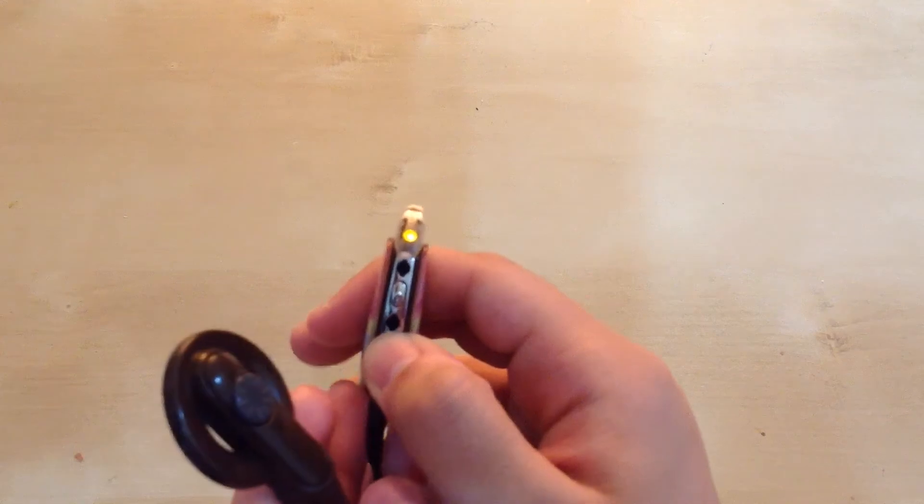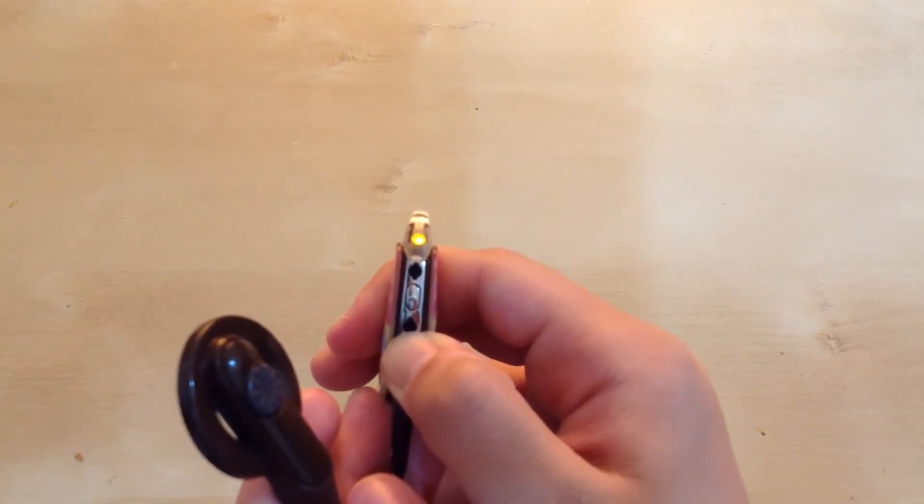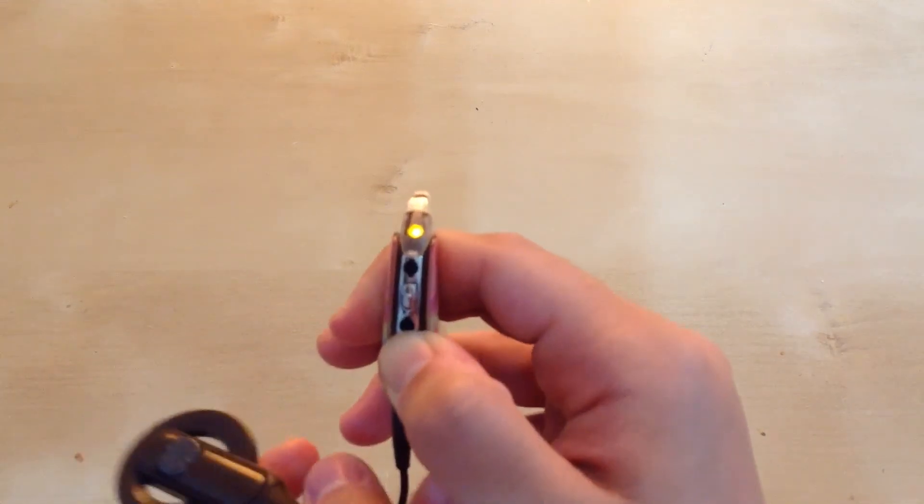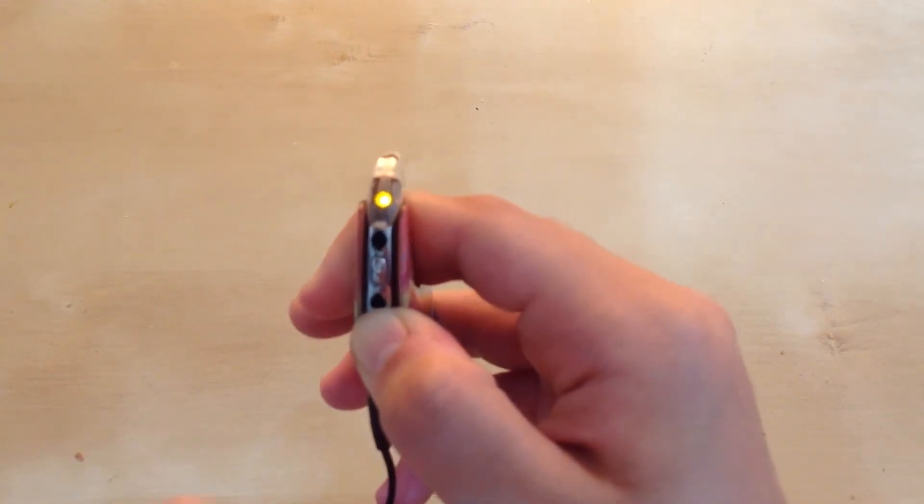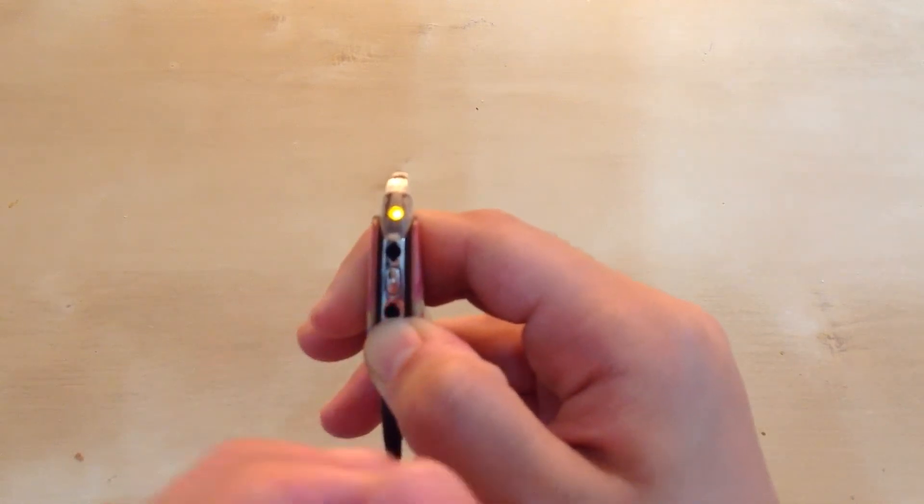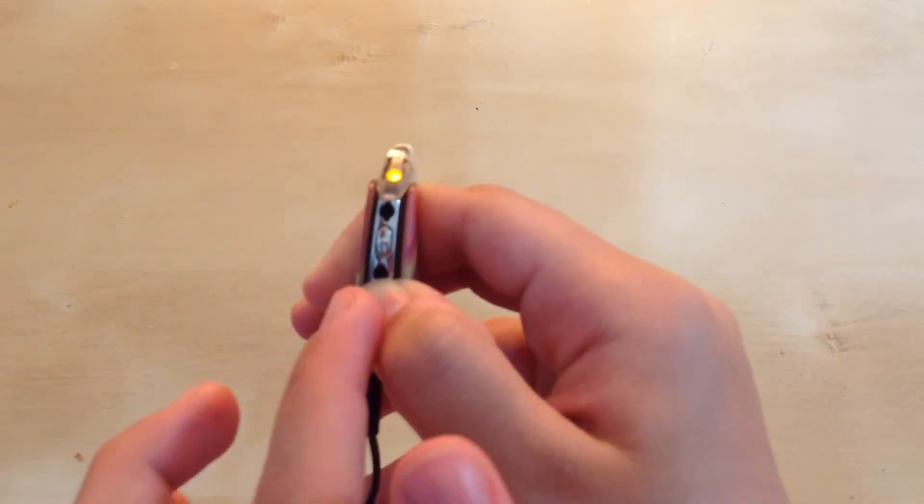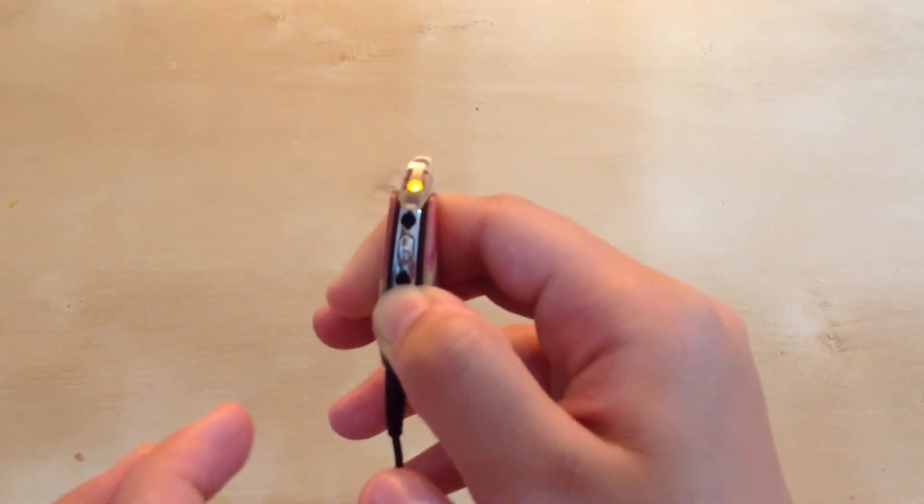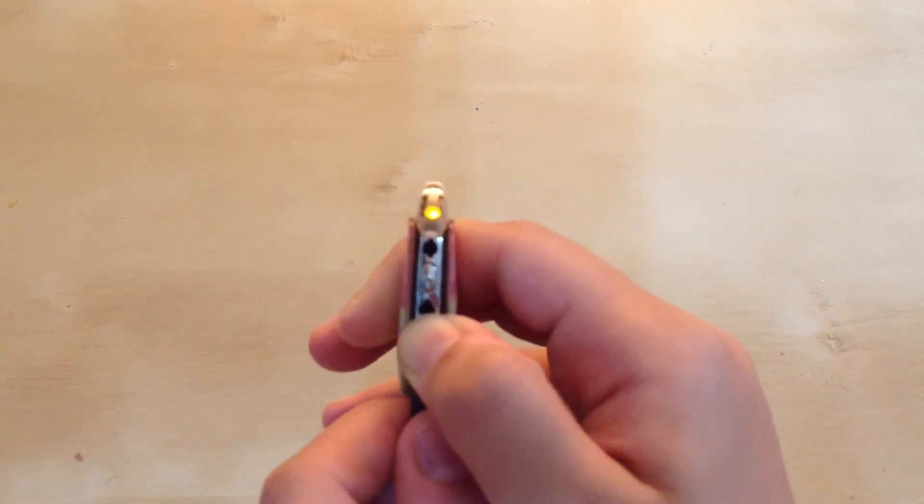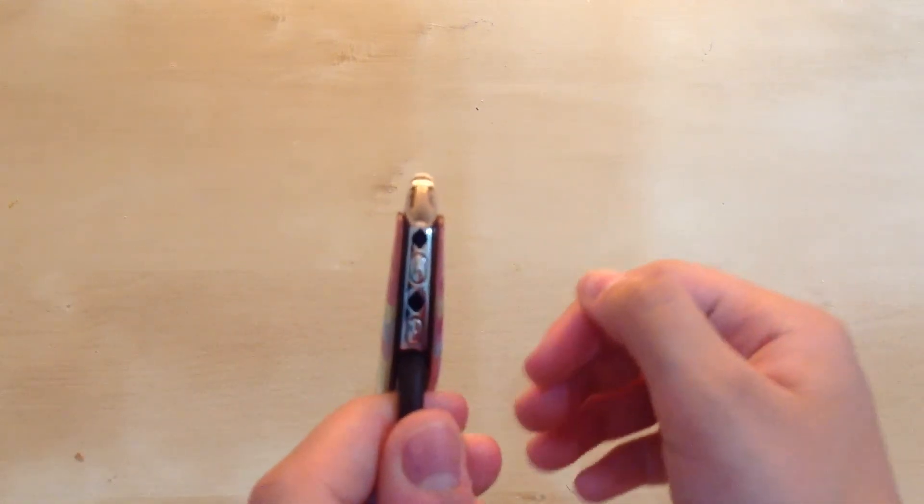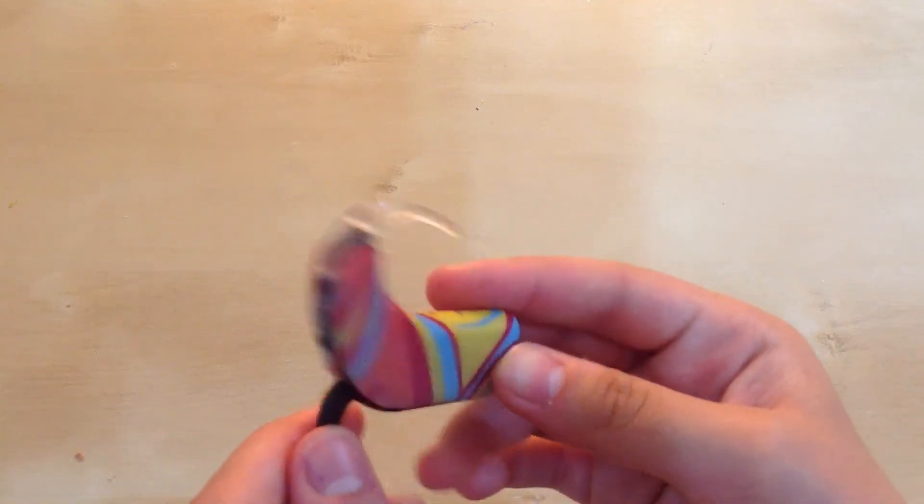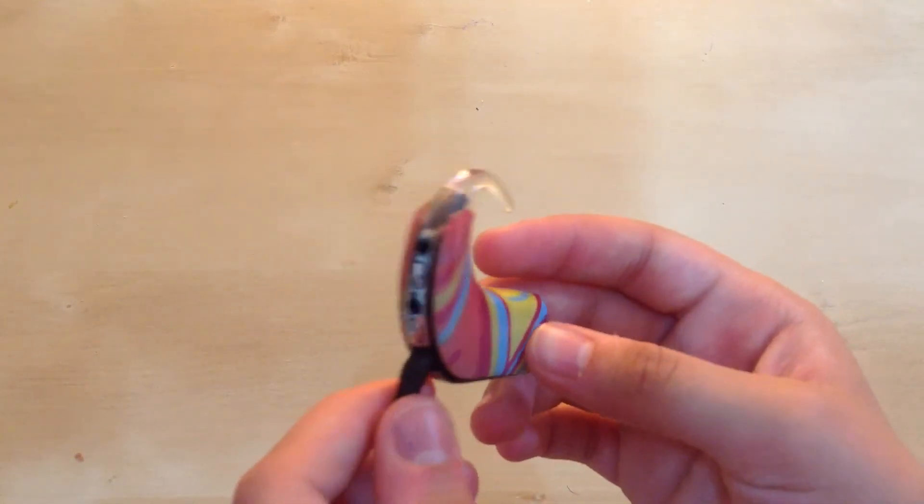Now if I let go, it's going to turn off. As you can see, the orange light is no longer blinking. It's just staying there because I'm holding the button. Once I let go of it, the processor is going to turn off. So let go of it, and now it's off. There's no light or anything now.